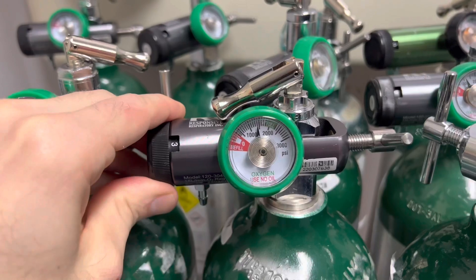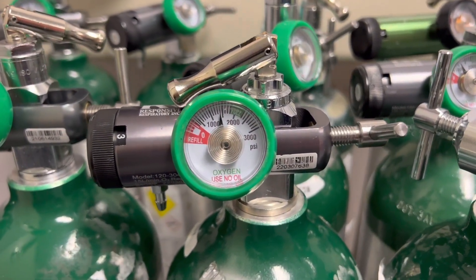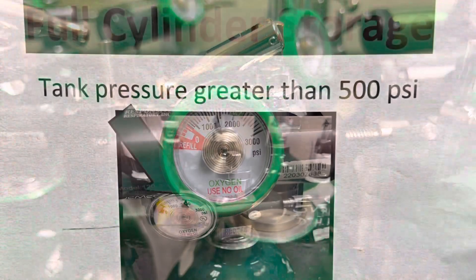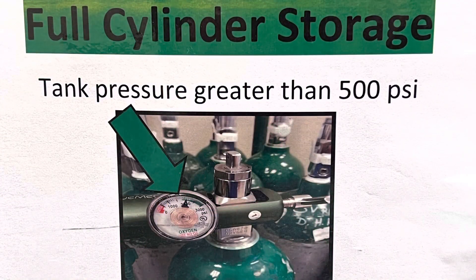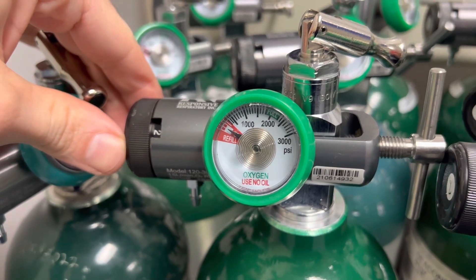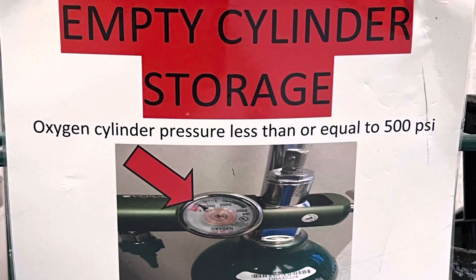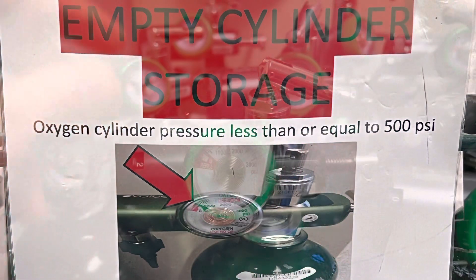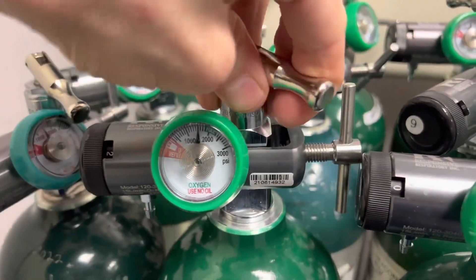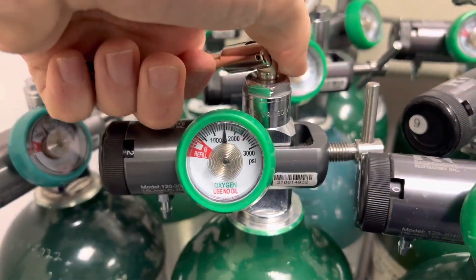When finished with the oxygen tank, assess the pressure gauge. If greater than 500 PSI, return it to the full cylinder storage rack. If the PSI is less than 500, place the tank in the empty cylinder storage rack. Close the tank's valve by rotating the toggle clockwise until tight.